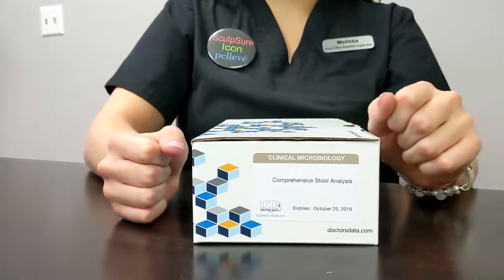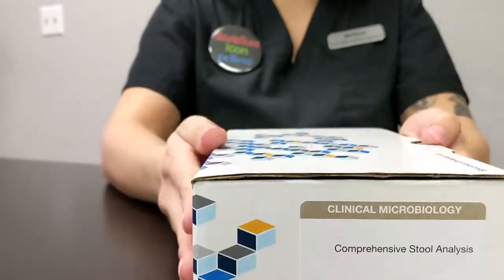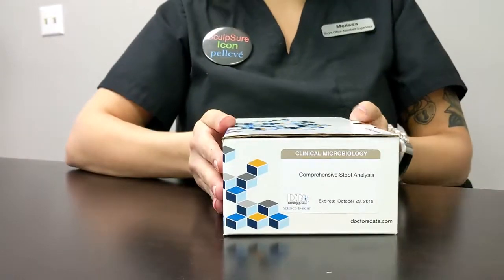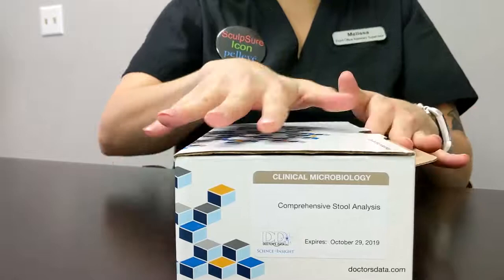Okay, this video is regarding the Doctor's Data Comprehensive Stool Analysis Collection by Optimal Health Spectrums. So let's get right into it. You were ordered to complete this test.